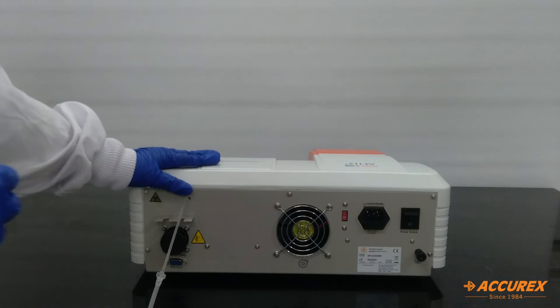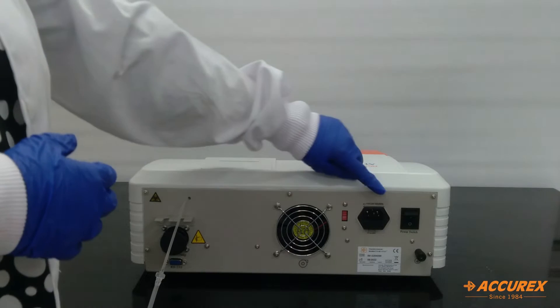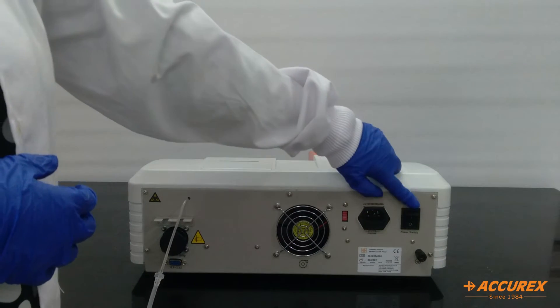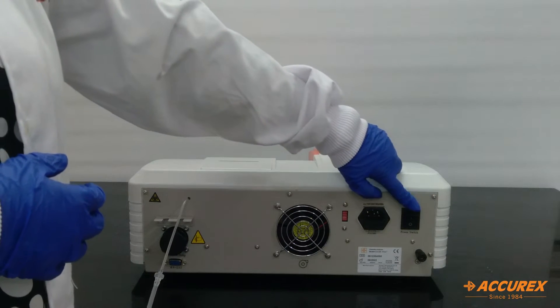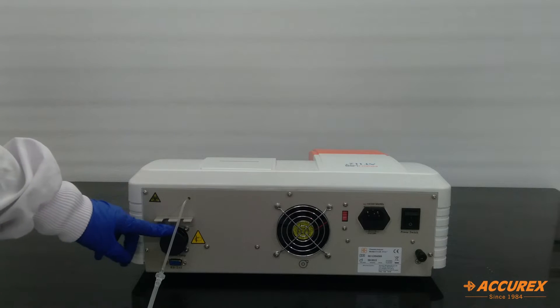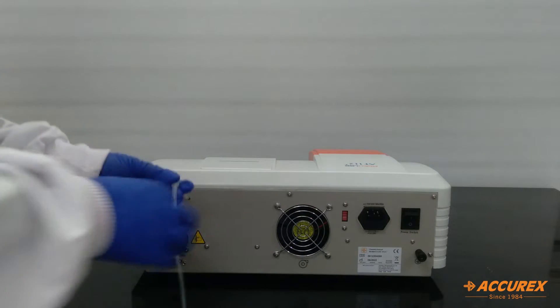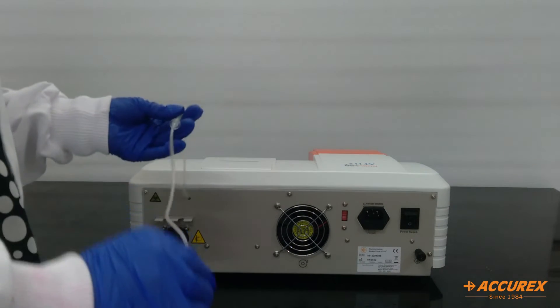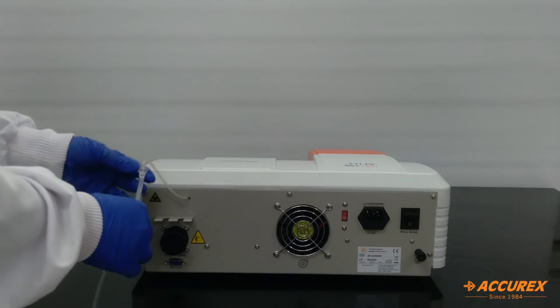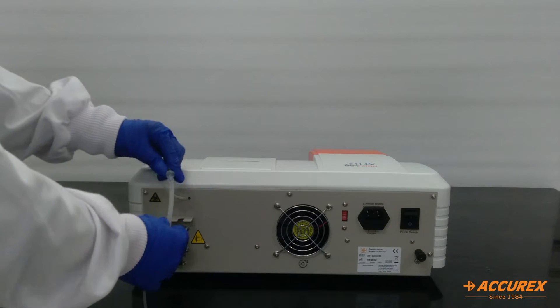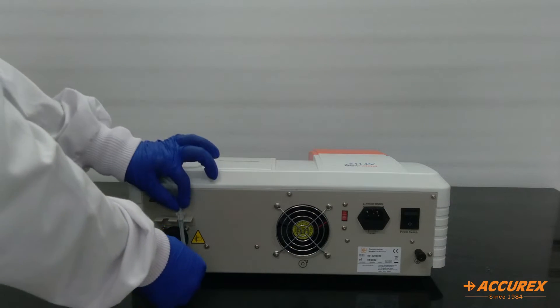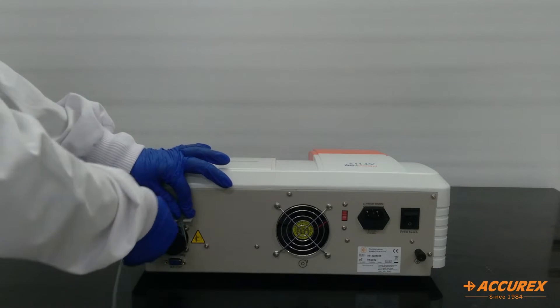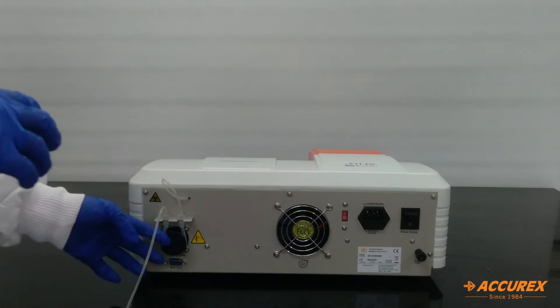This is the backside of the analyzer. Here there is the power socket, the power switch. This here is the peristaltic pump and this is the peristaltic tube and the drain tube. We will see how to connect this peristaltic tube to the peristaltic pump. First we will need to insert this side the peristaltic pump and then pull this one here and this is connected.